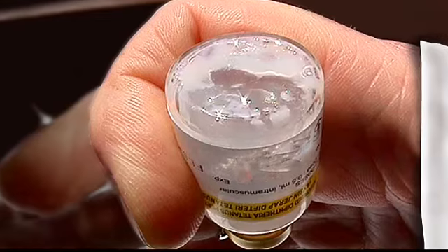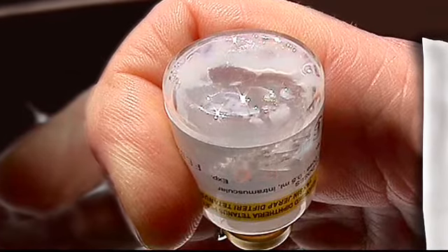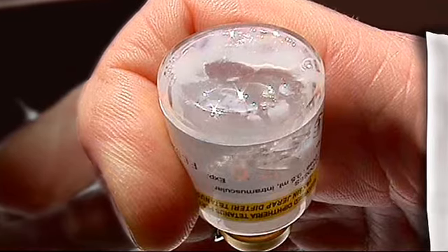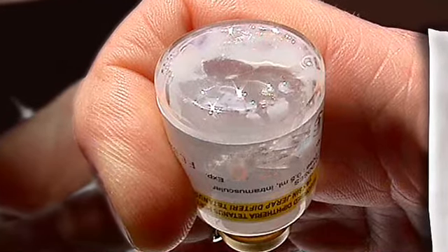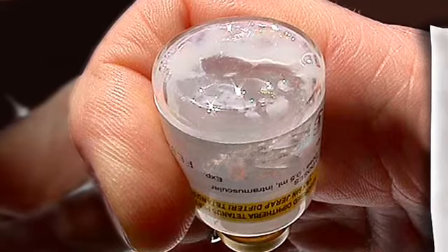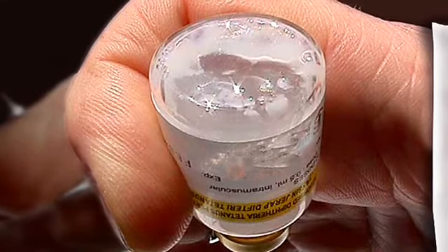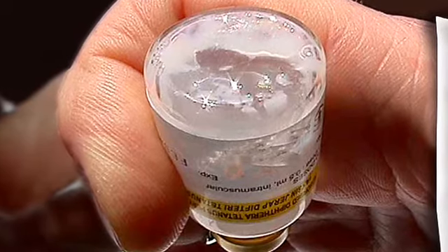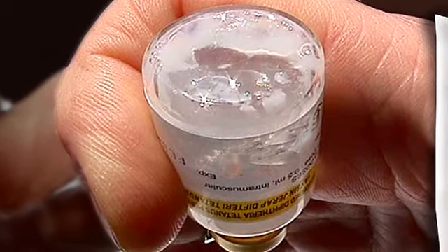Some DTP vials, when exposed to sub-zero temperatures without freezing, develop white lumps of sediments that are attached to the walls of the glass vial. A homogeneous solution cannot be obtained despite vigorous shakings in such vials. The shake test should not be conducted on such vials, and they should also be discarded.